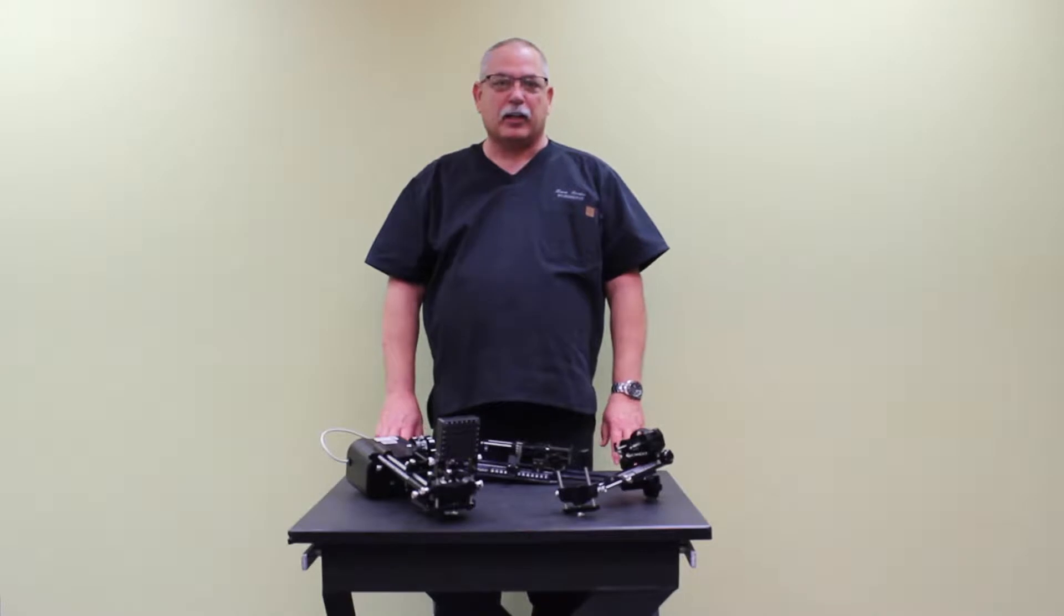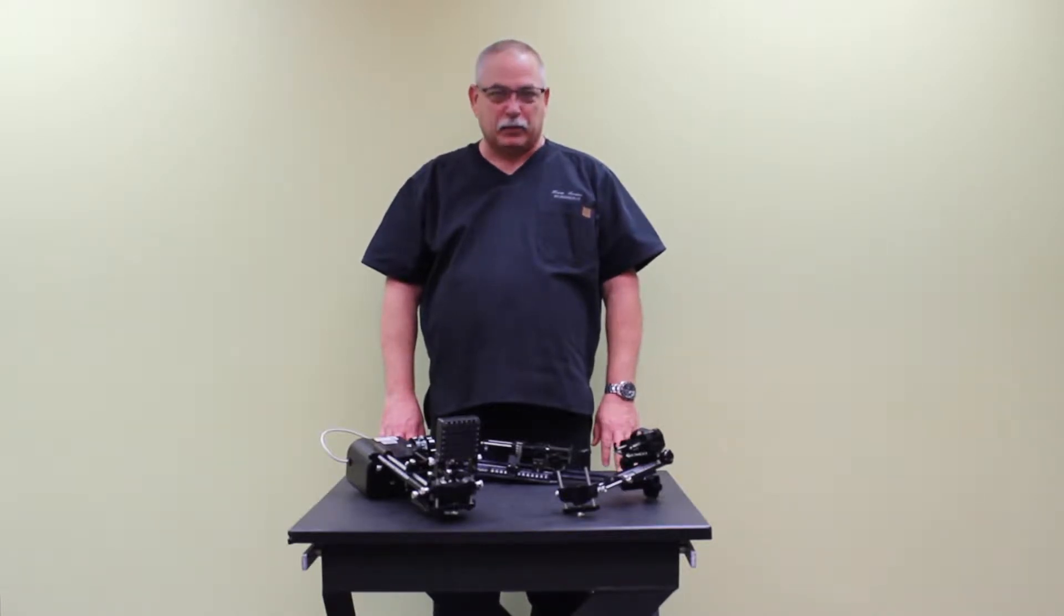Hi, my name is Kevin Rooker. I'm a clinical marketing specialist here at Civco Medical Solutions, and today I'm going to show you how to assemble and use your micro touch stabilizer and classic stepper.